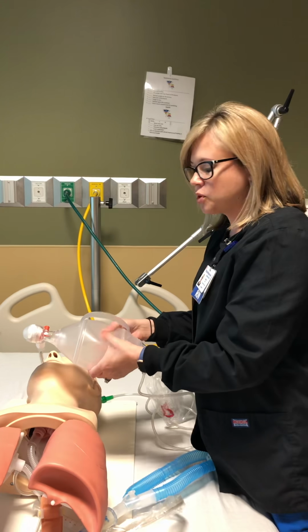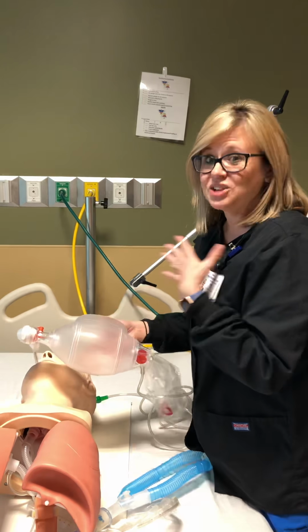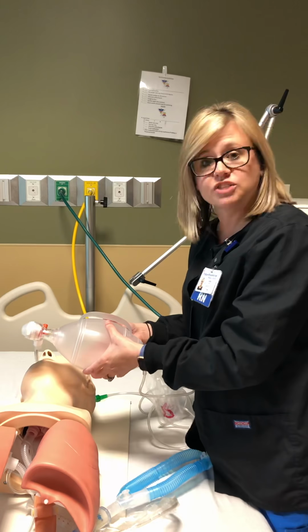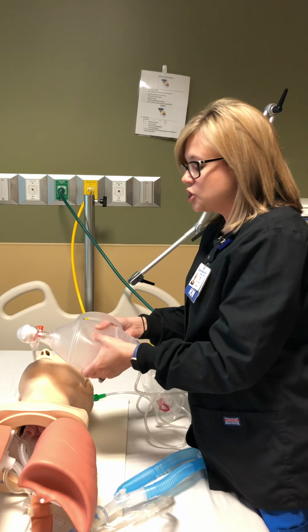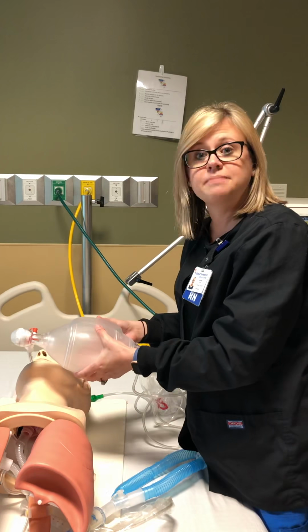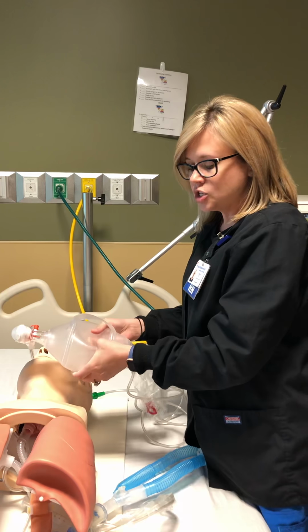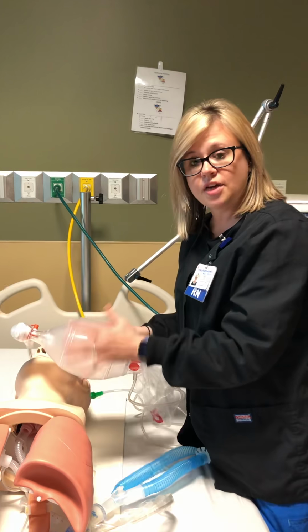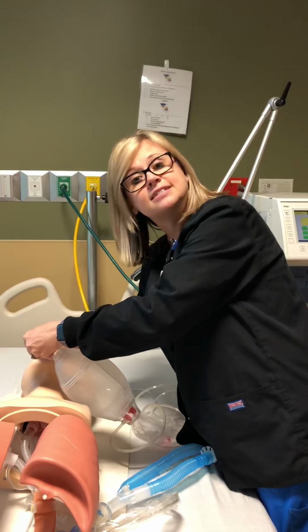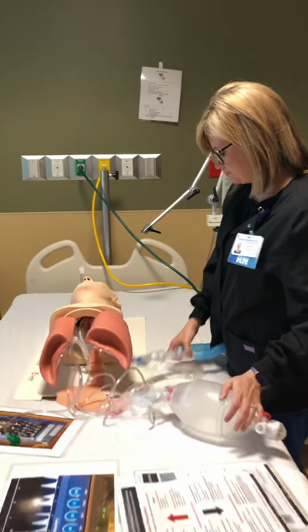So you're going to give one breath over 5 to 6 seconds, okay? You give them a breath, you take a breath, because it can be a stressful moment of what's going on. So you may have to bag for 5-10 minutes until they get done with that intubation in the next room and can get over there, okay? So that's just some of the troubleshooting items that you can go through, look at to see what's going on with the patient. Now, let's go back to suctioning.